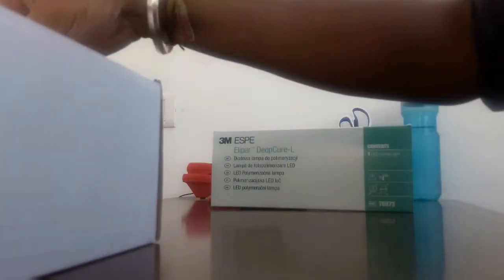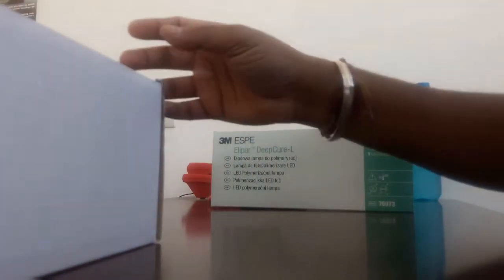The value of this product is around 55,000 rupees in India. Dental Cart is providing it. I'm going to unbox it without taking much time.